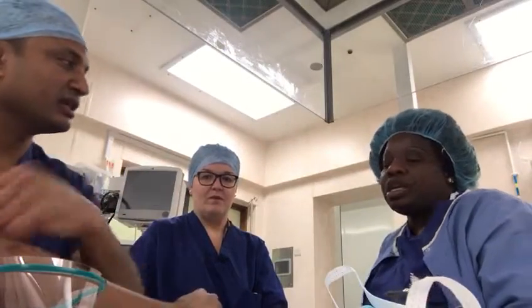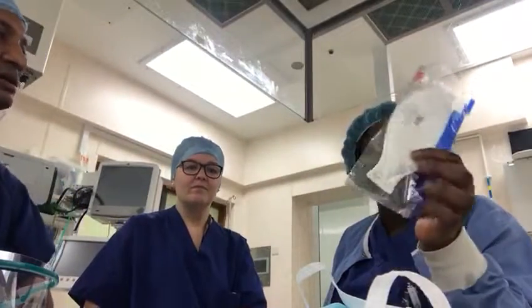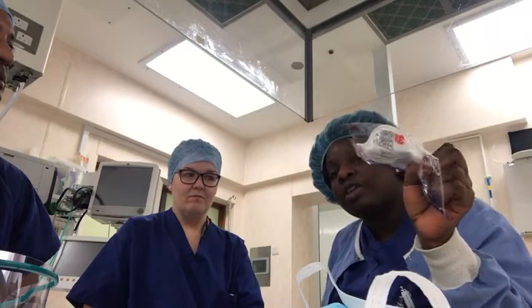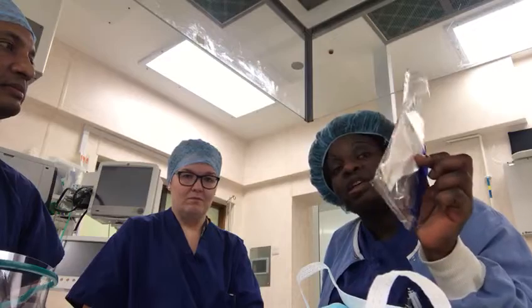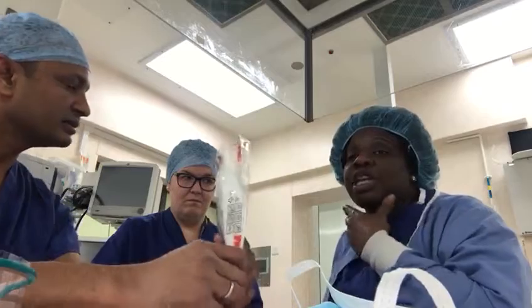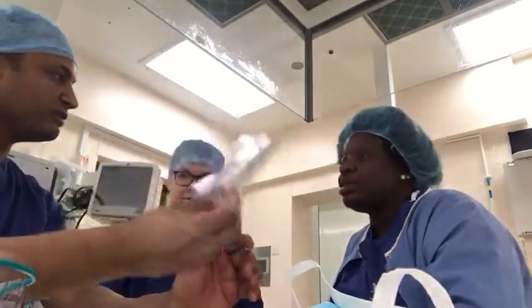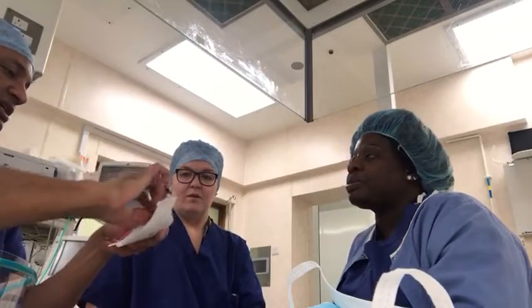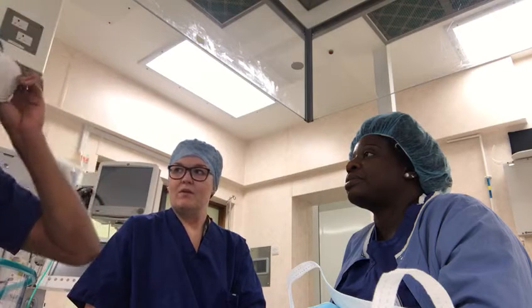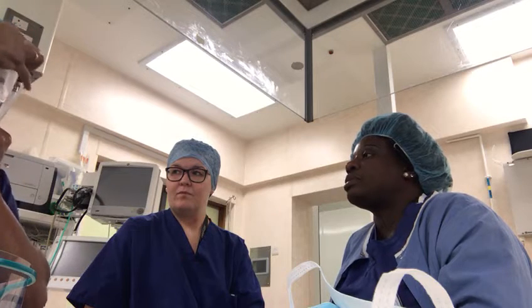So what's the answer with regards to masks? We have FFP3 masks. There are different makes of them, but these are good for coronavirus. However, these masks have to be fitted before they can protect you — not everybody can wear them. Men with beards, for example, the masks don't fit them at all. You can't just buy one off the shelf and wear it; it's not going to give protection.